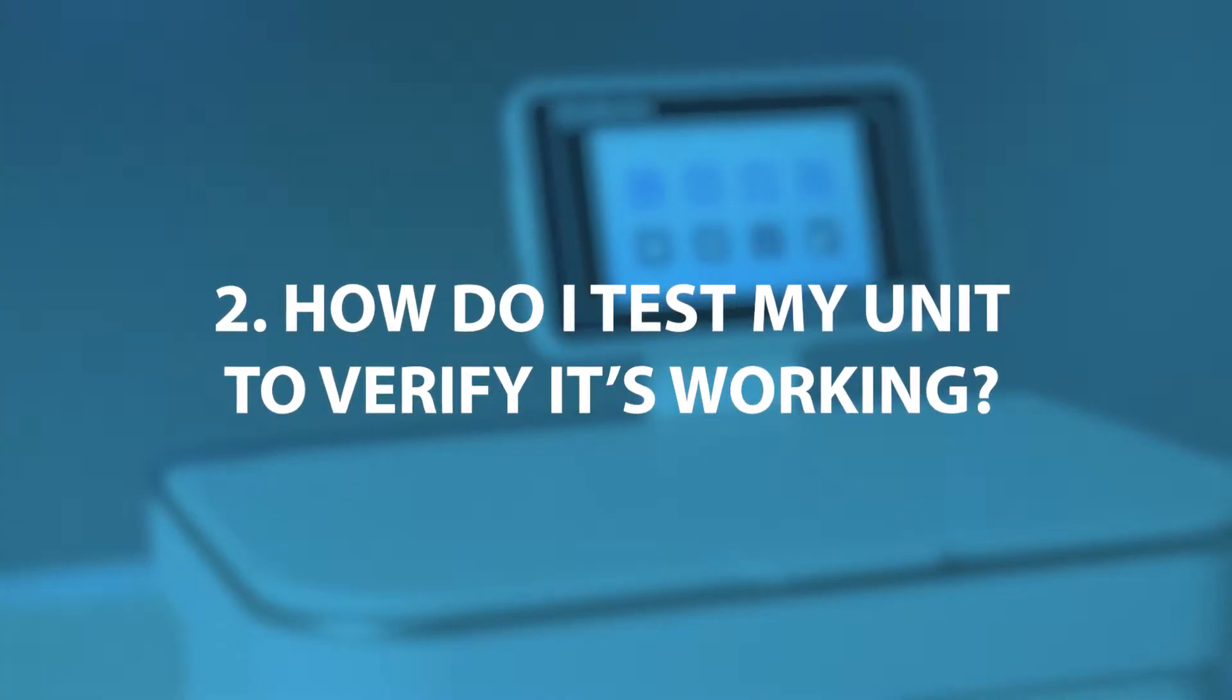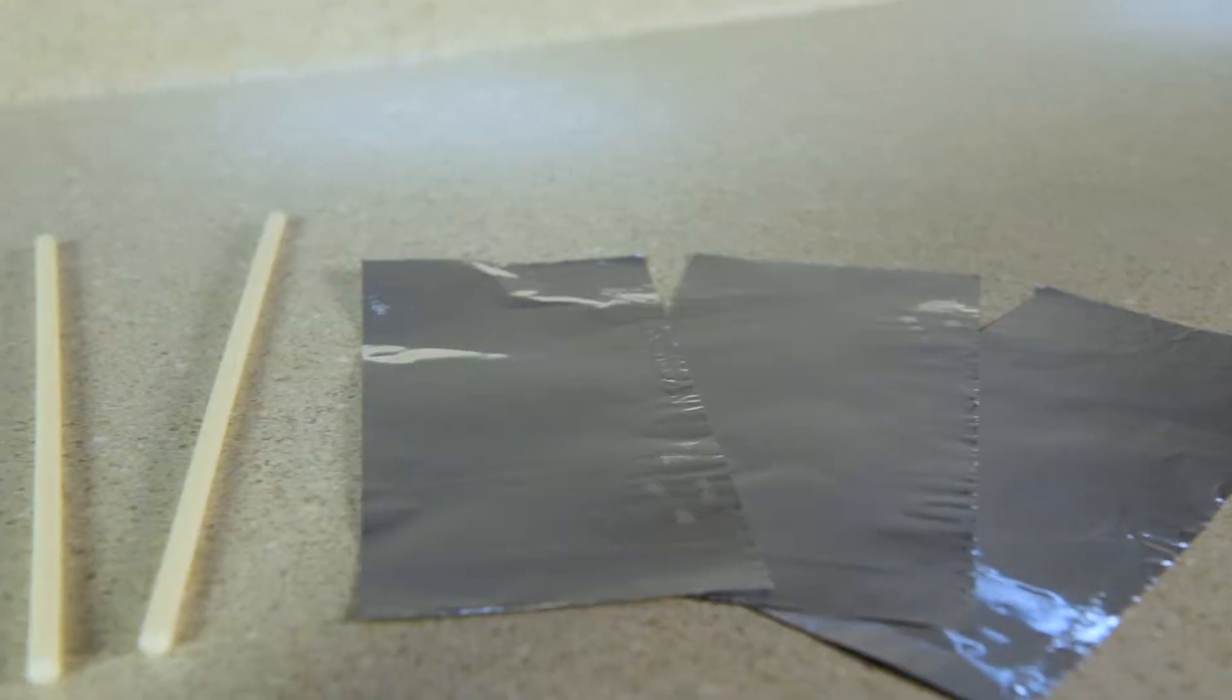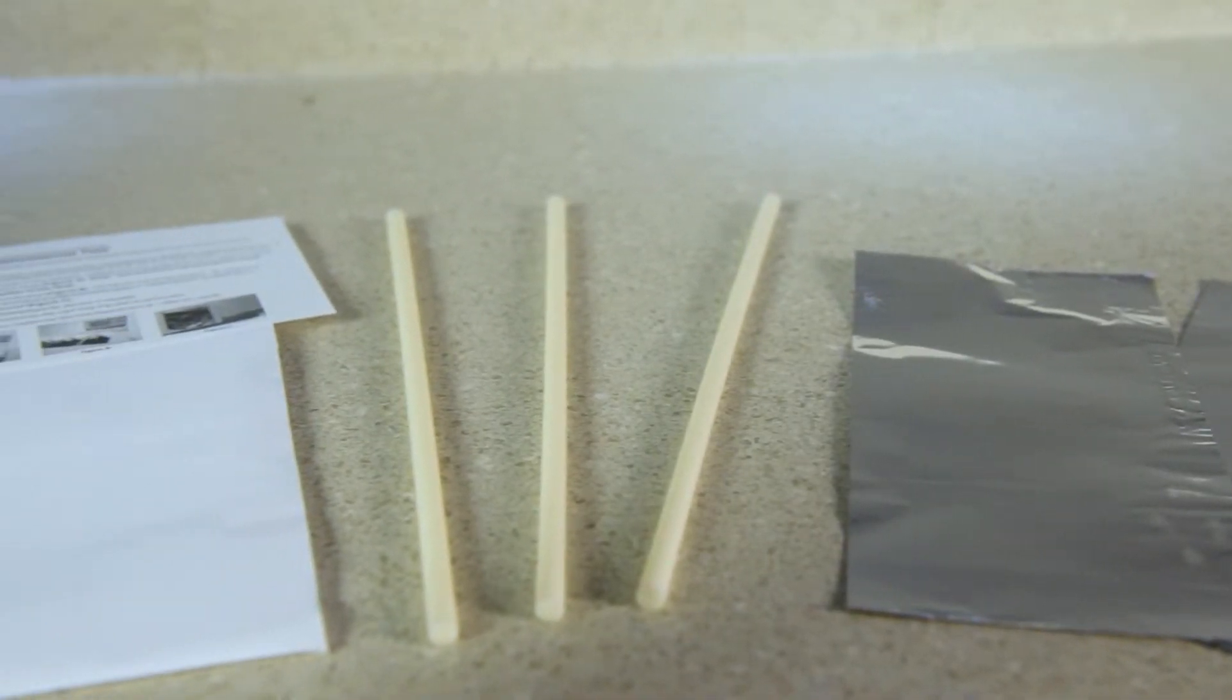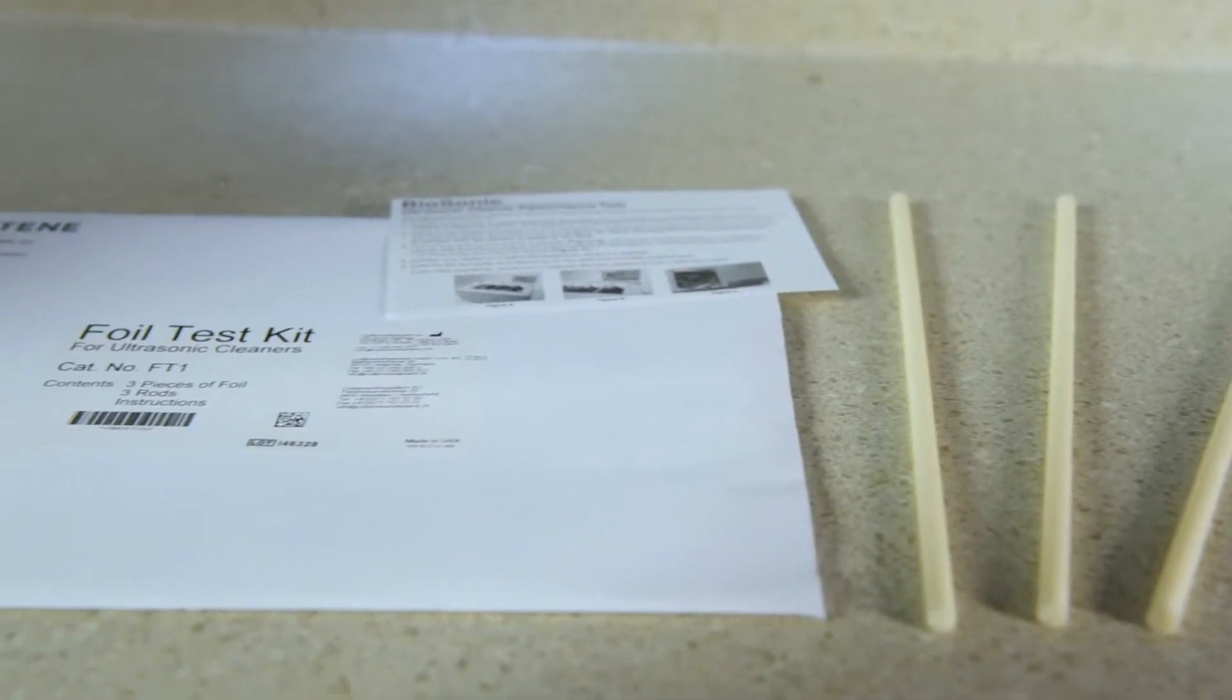How do I test my unit to verify it's working? In order to test your ultrasonic cleaning unit, you'll need to perform a foil test.